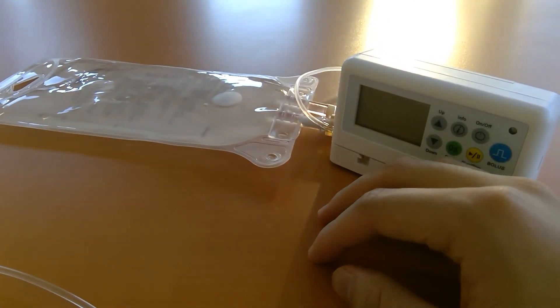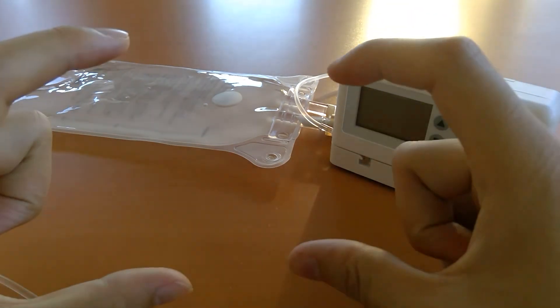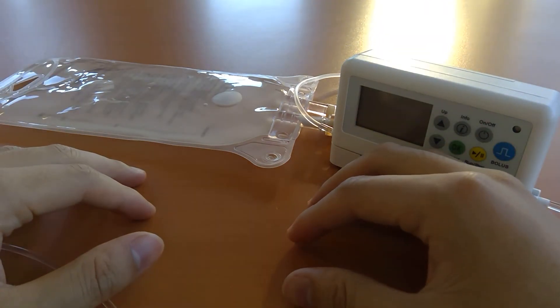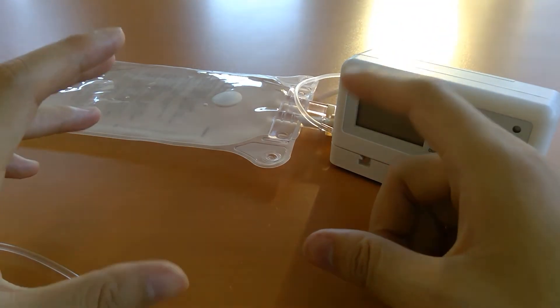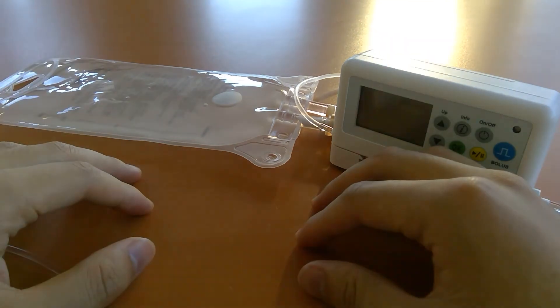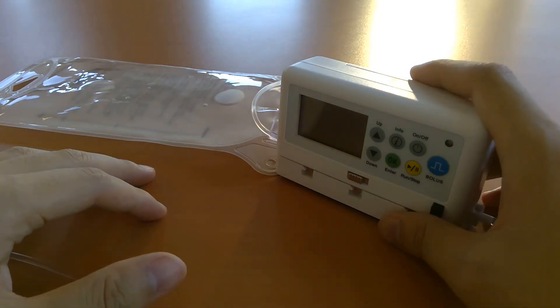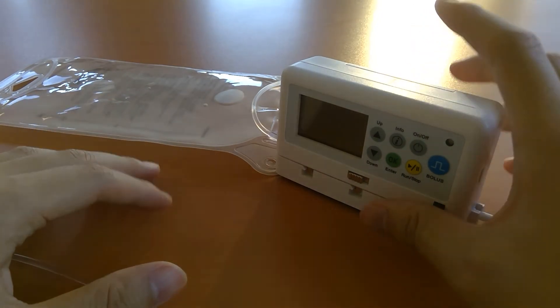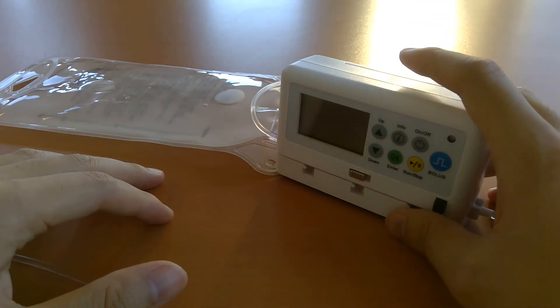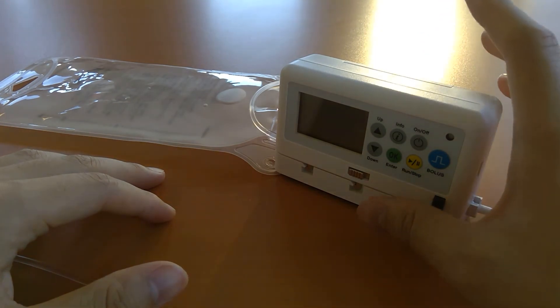In terms of accessories, there's a multi-pump mount — it looks like a metal bicycle rack and can hold four Nimbus pumps, letting you mimic a multi-channel application. If one Nimbus breaks you can simply swap it out individually. The Nimbus itself is very durable — we've completed all transportation testing following military standard 810G, and it maintained all accuracy and flow rate under those conditions, so it's rated for transport.